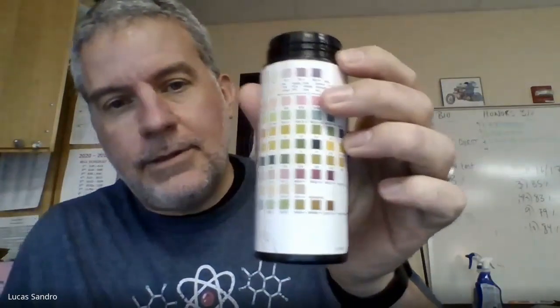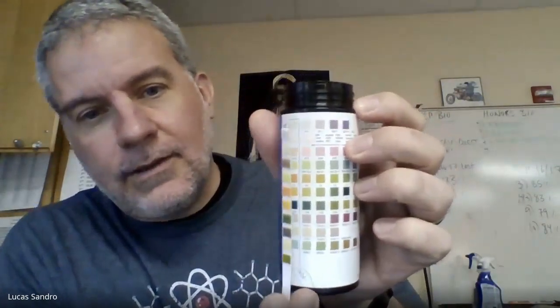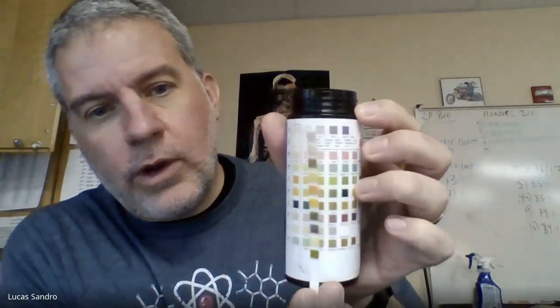And then once you've let it develop, put the cap back on. And it turns out that the jar that the dipsticks come in is your scale as far as reading what weird chemicals are in the urine. And by knowing which chemicals are in the urine, there's like umptillion different diseases you can diagnose.